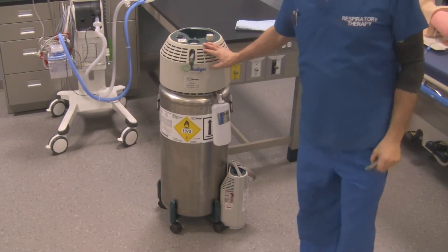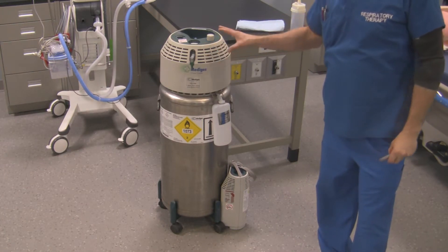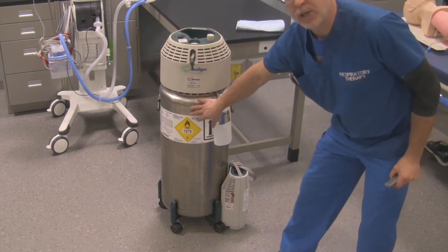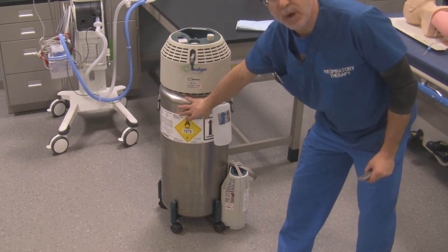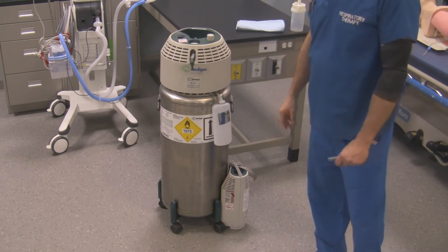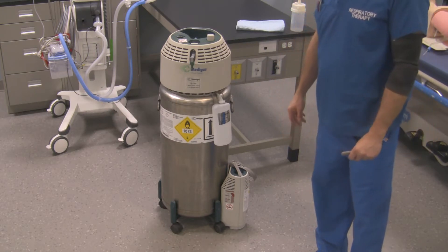This is called the liquid oxygen reservoir or stationary unit. It contains oxygen inside of it in a liquid state, so this is one great big vacuum container — like an insulated thermos bottle. It stores the oxygen inside in liquid form at a really, really cold temperature, so there might be some issues with protection.